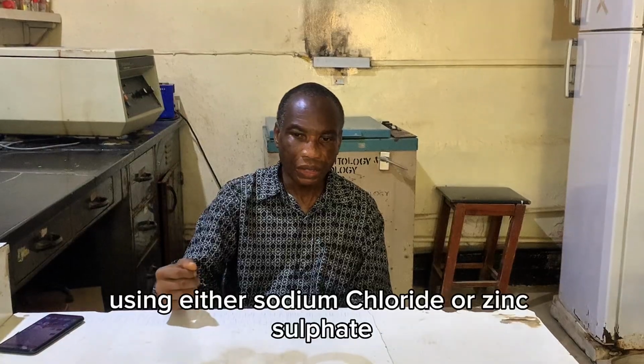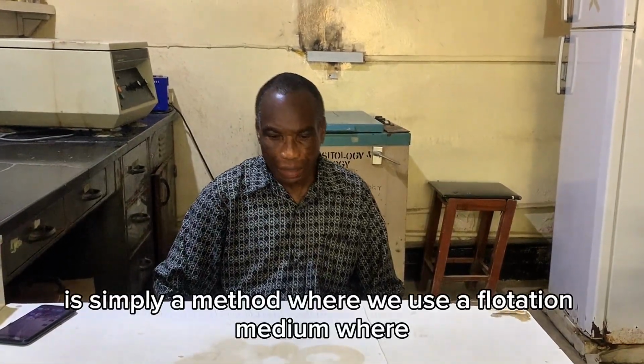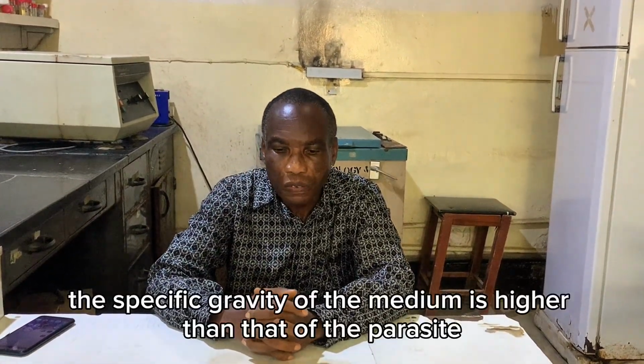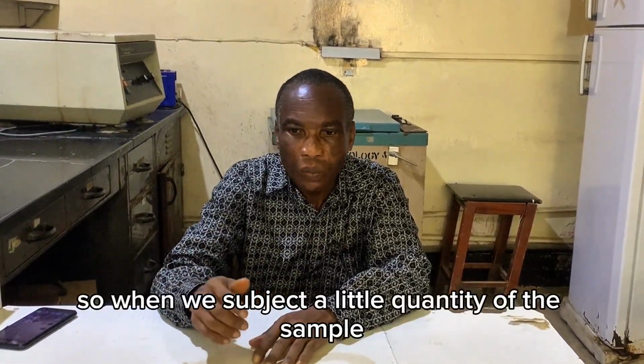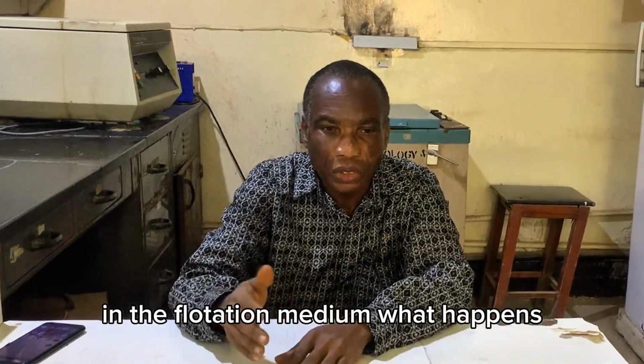Now, a simple flotation technique using either sodium chloride or zinc sulfate is simply a method where we use a flotation medium where the specific gravity of the medium is higher than that of the parasite. So when we subject a little quantity of the sample to the flotation medium, what happens?